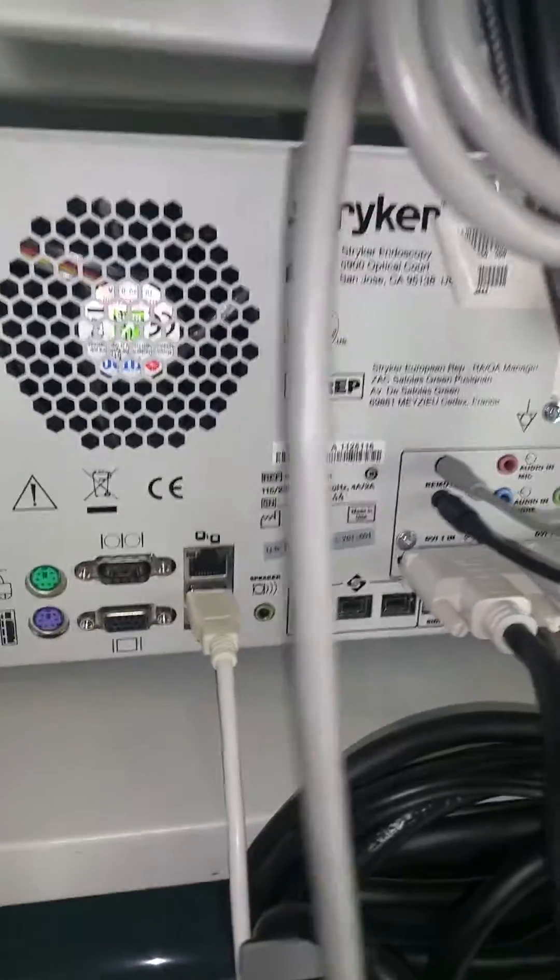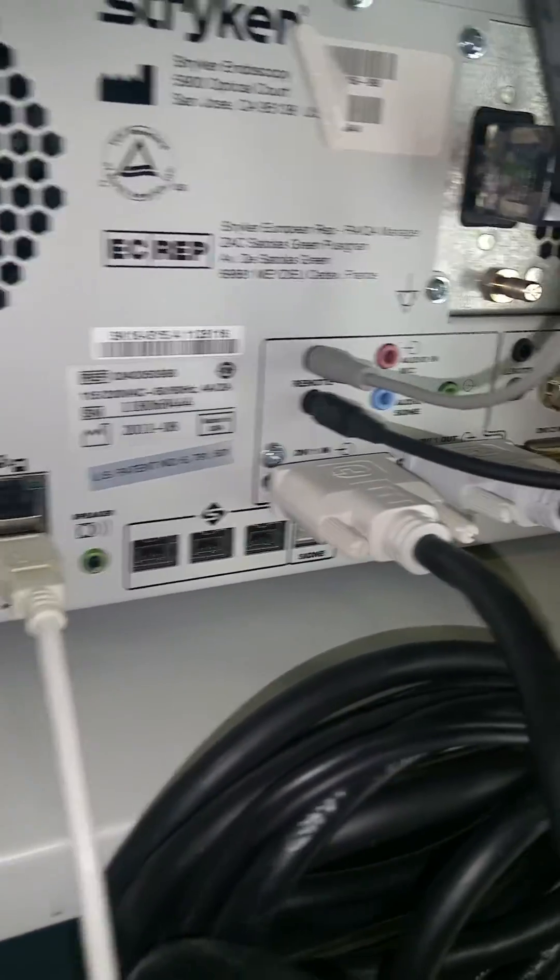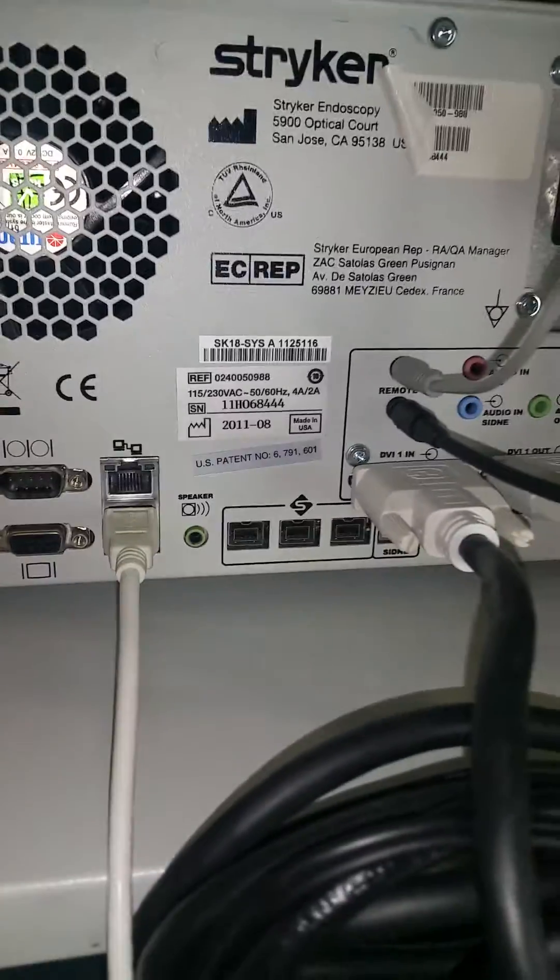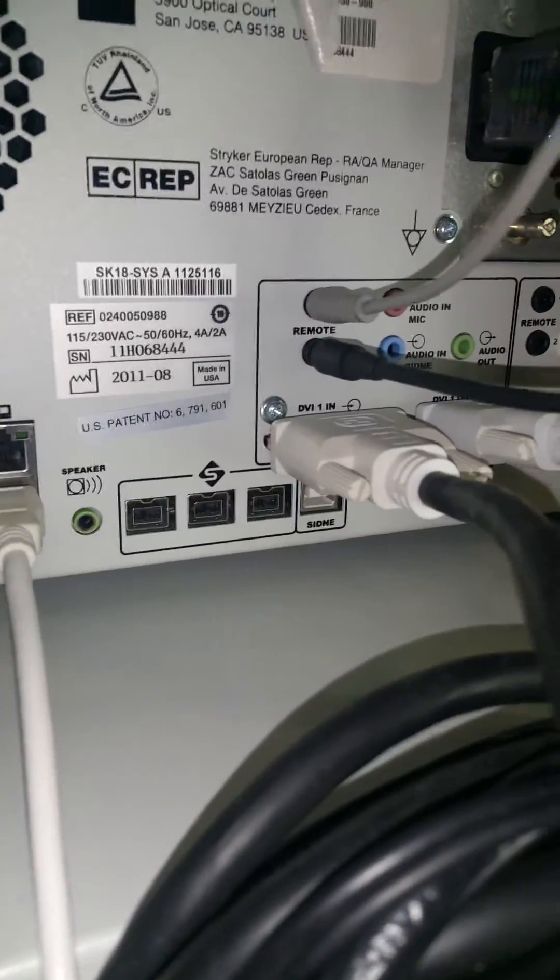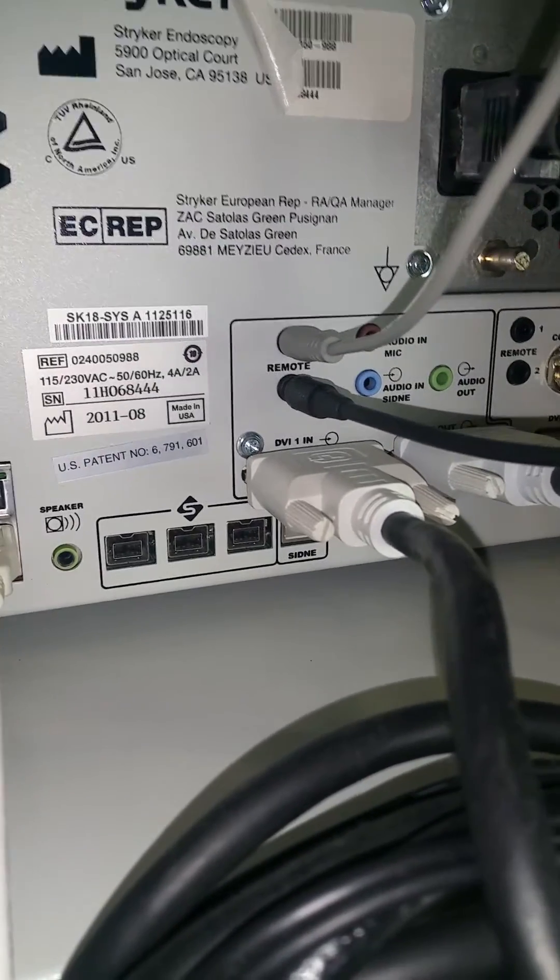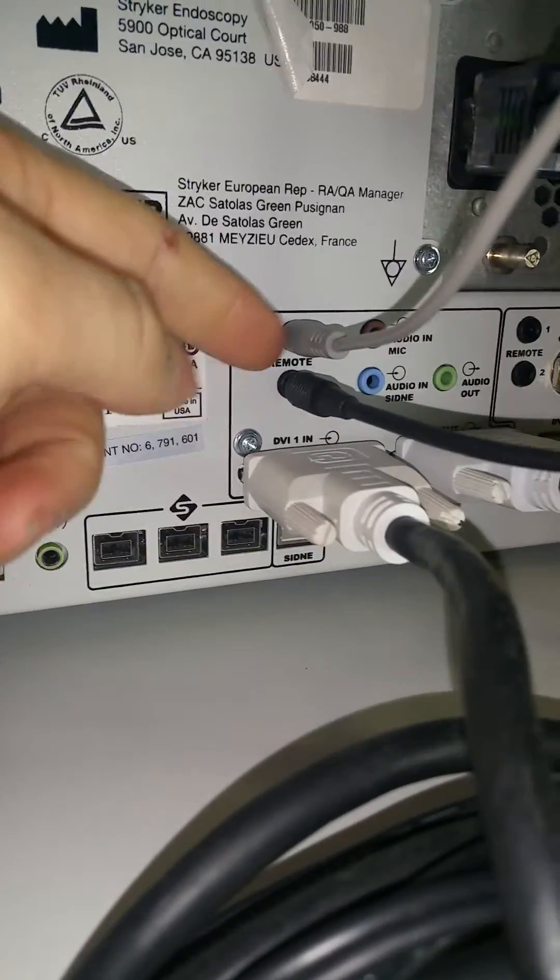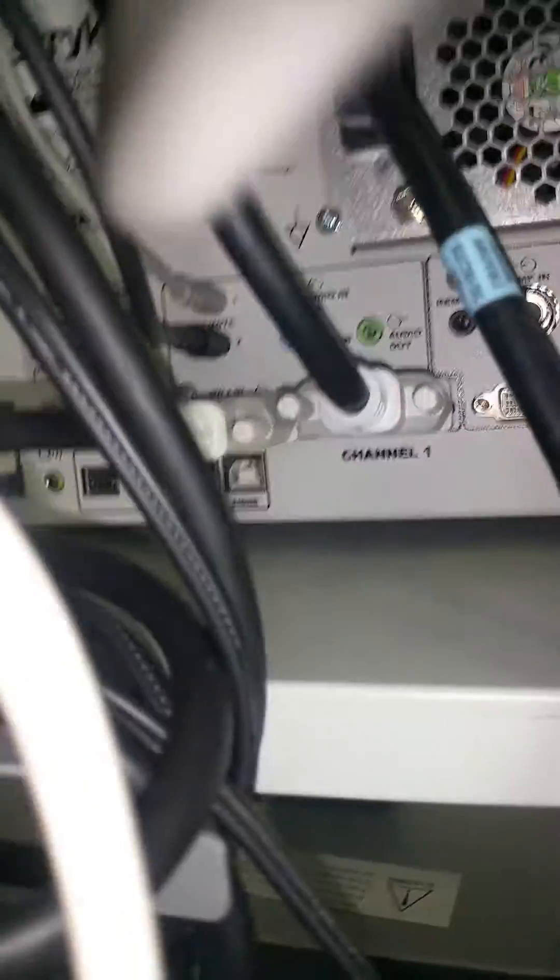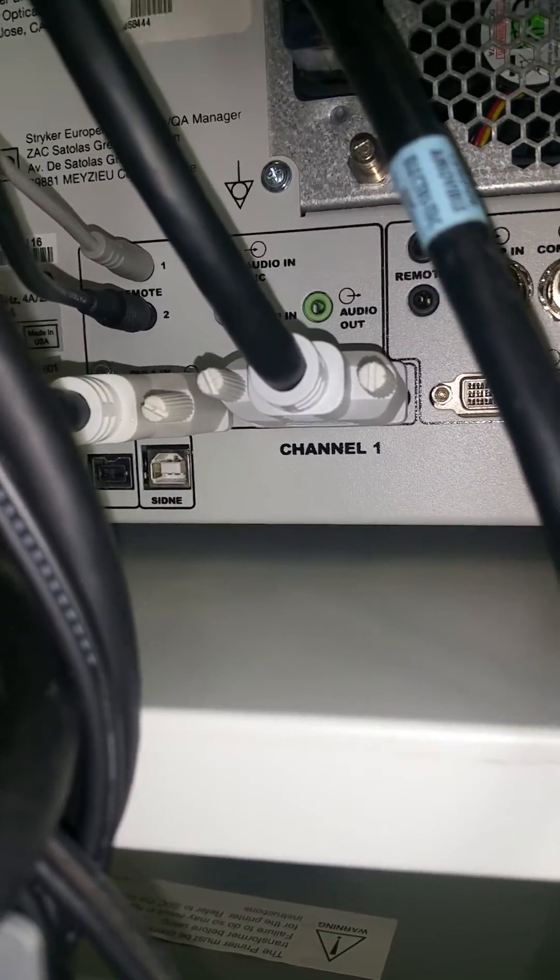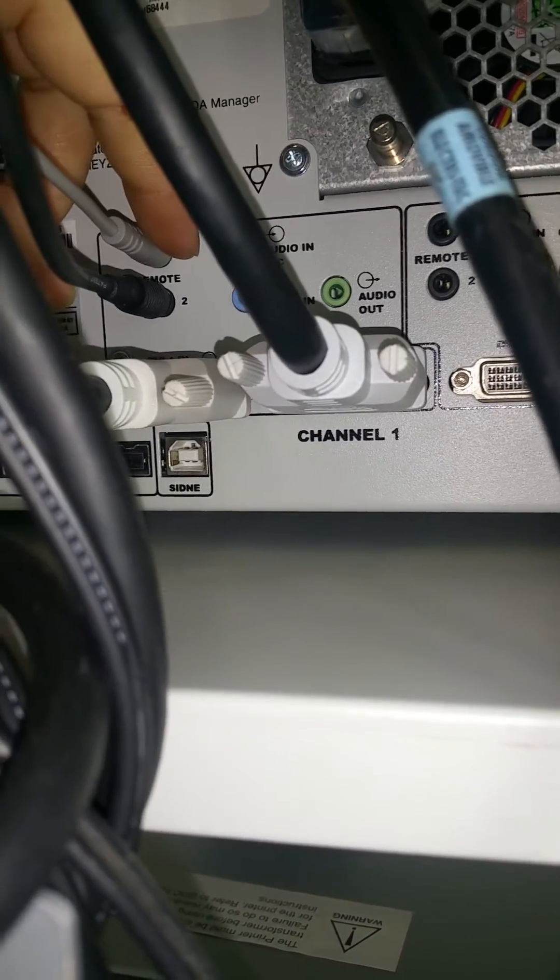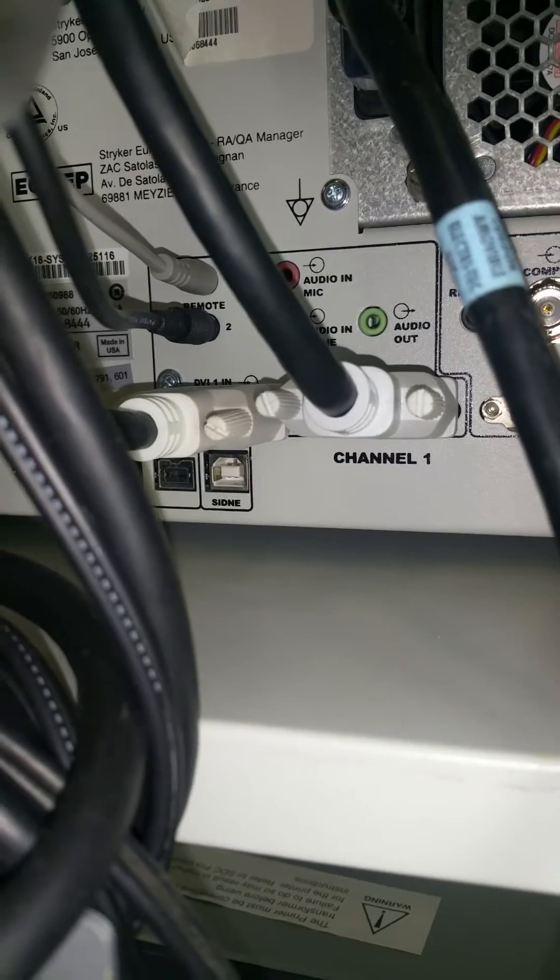Moving on to the SDC. The SDC has an awful lot of hookups in the back of it, but I promise it's real simple. Because you're only using one camera box, we're going to focus more on this channel. It actually says below here channel one for this, this box here is channel one. And that's all that we're going to be dealing with.